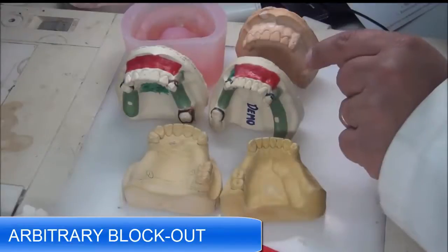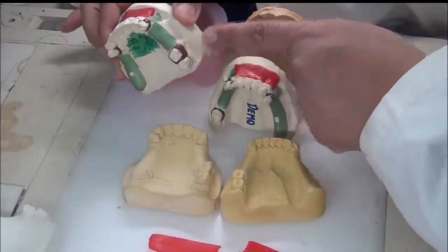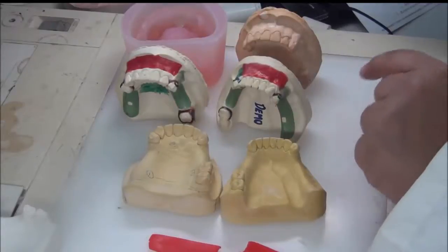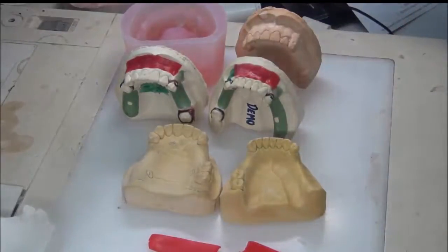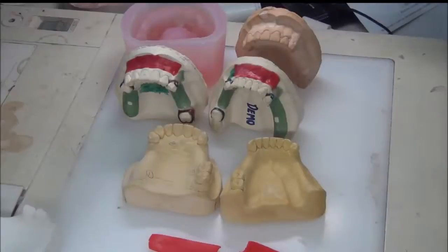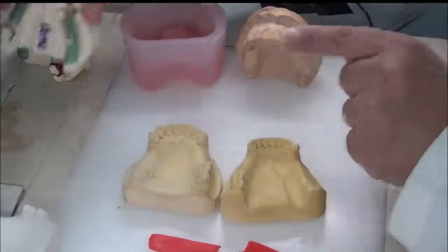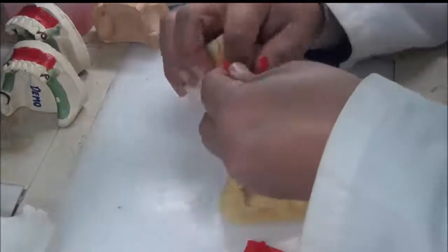The first wax addition is adding wax to labial undercuts and buccal undercuts that might cause fracture of the refractory cast. We place it outside the area where metal will be. The purpose is to strengthen the refractory cast so it will not fracture during removal from the duplication material — it serves nothing for the metal framework. We use utility wax, added in strips in the undercut areas, starting with the first strip in the deepest part of the undercut.